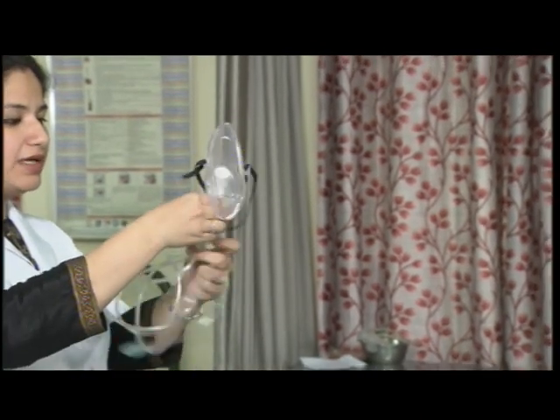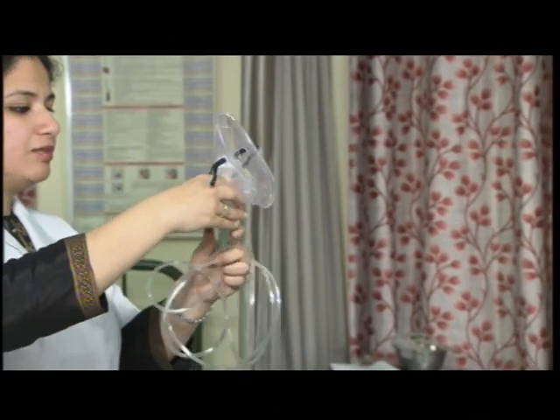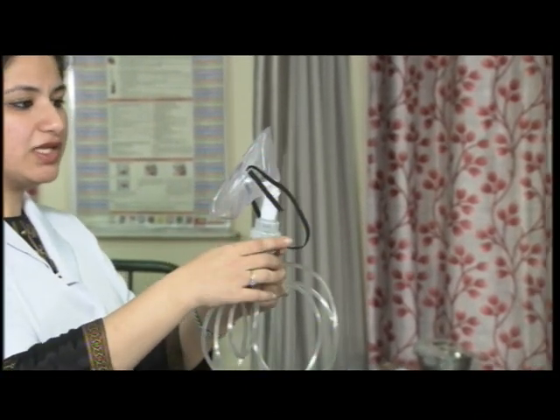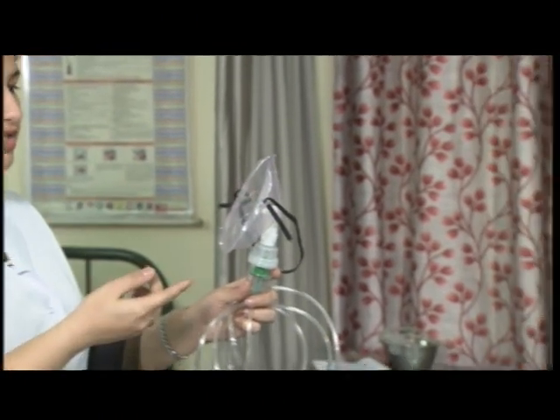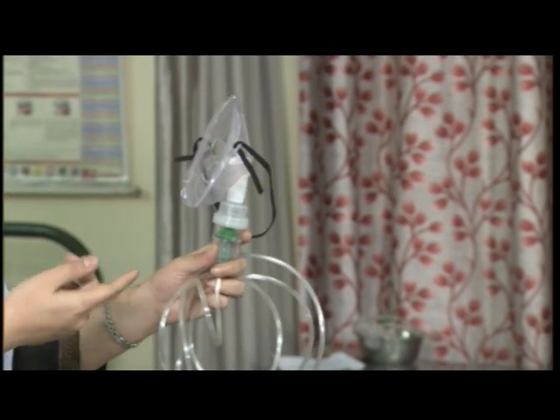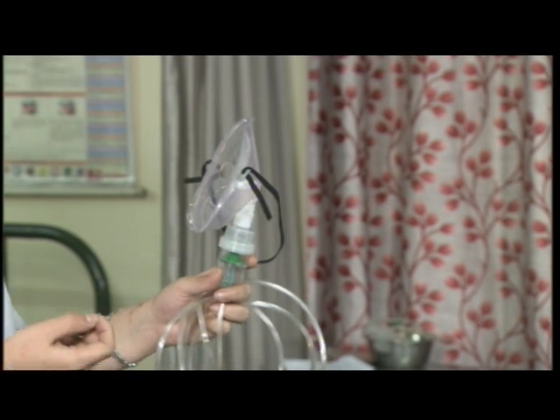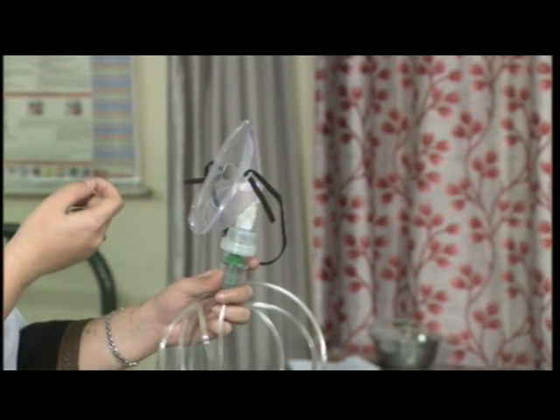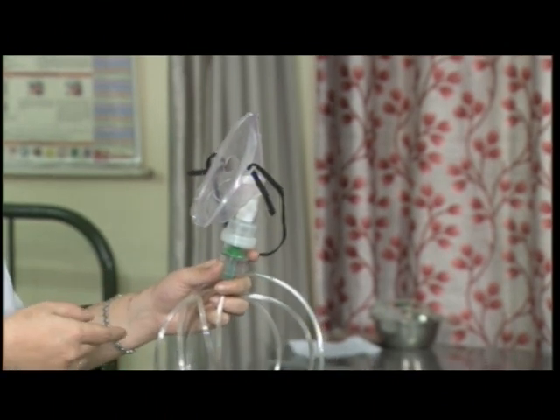This is the chamber in which we put medicines for inhalation of the patient if prescribed by the doctor, because oxygen is used for medicinal purposes. It should have clear written orders from the doctors regarding what medication is given and at which flow rate the oxygen has to be administered to the patient.